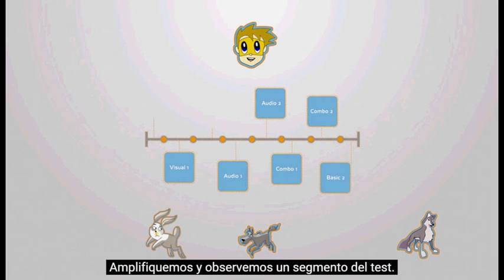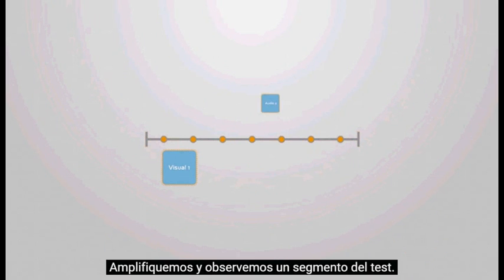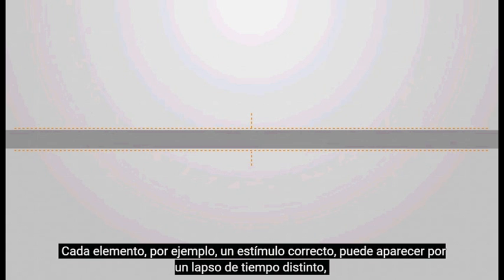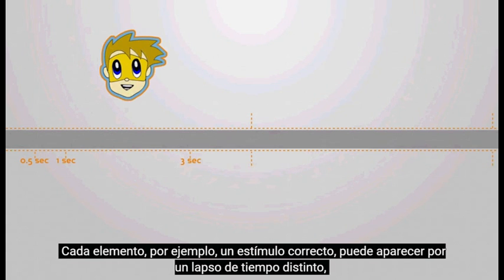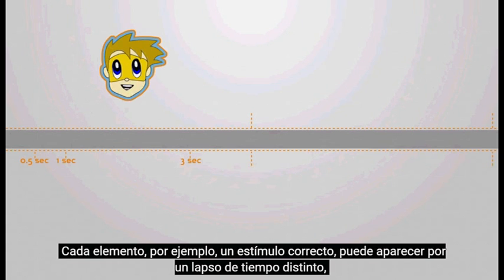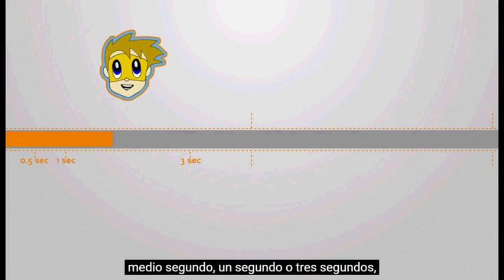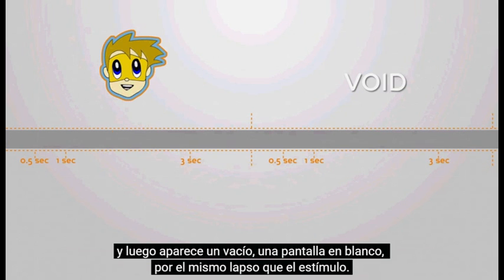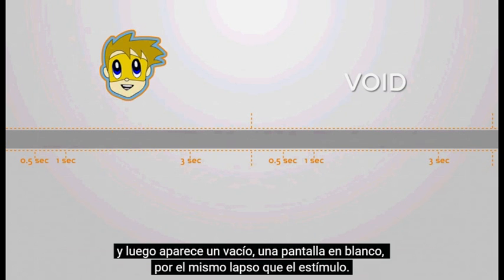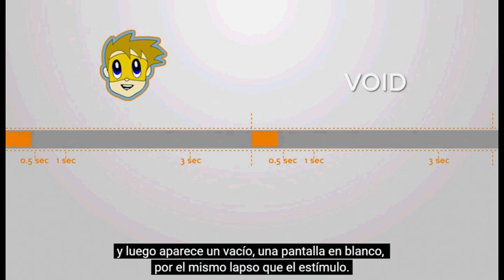Let's zoom in and look at a segment from the test. Each element, for example a target, can appear for a different length of time: half a second, one second, or three seconds. Then a void appears — a blank screen — for the exact length of time as the element.